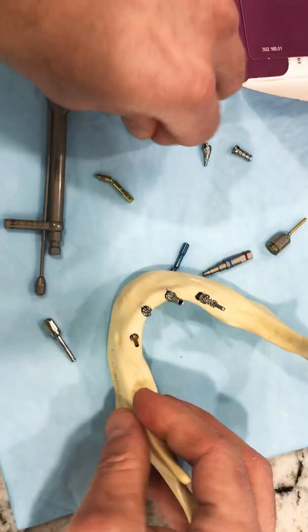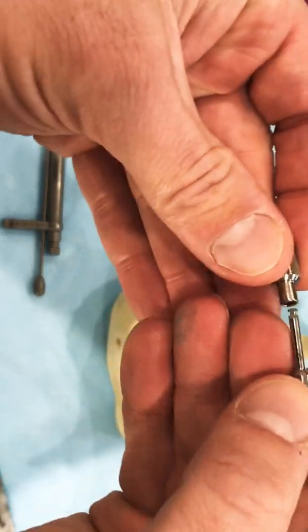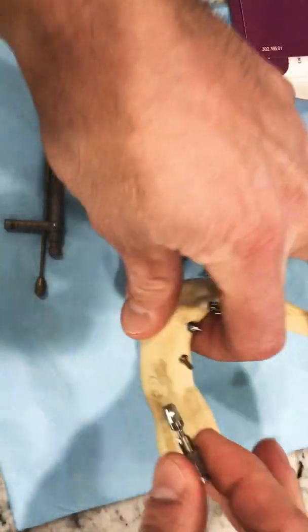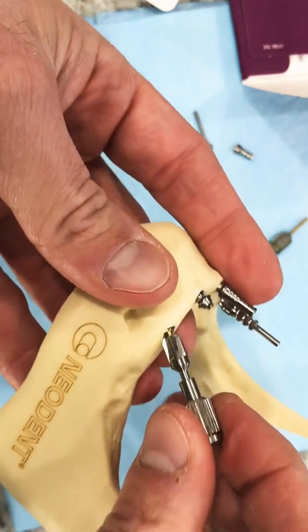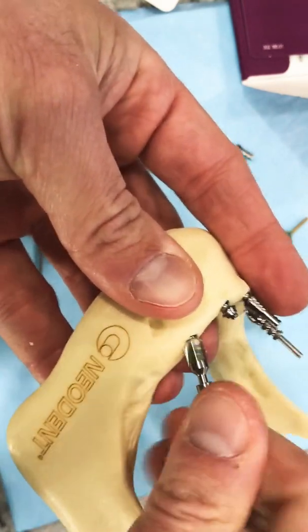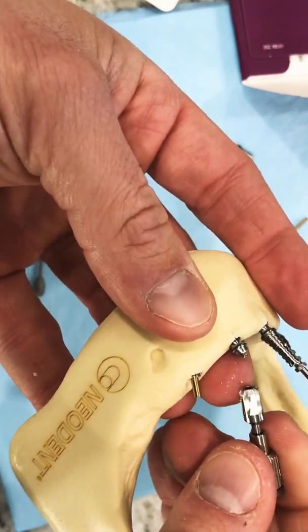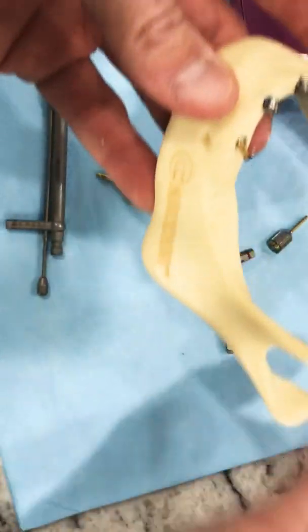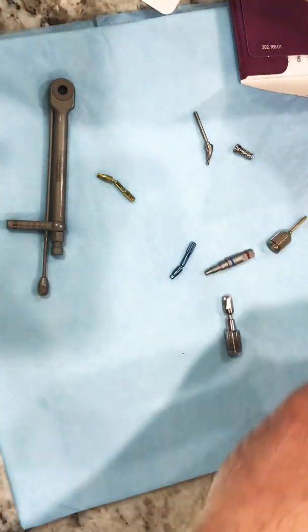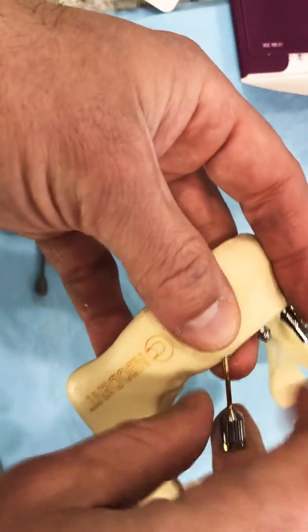Since I don't have a handpiece, I'm going to use my screwdriver — this is for the GM system, the star driver called a neo driver. I'll place this down in and turn it until it gets tight on the top of my implant. And then once that's down, instead of a handpiece, I'm using the latch type adapter today, which in a pinch you could even use in the mouth on the patient. This guy slips right over top, rotates back and forth, and takes the littlest bit of bone away — I can see some on the side of the profiler here on the sawbone material. It takes just the slightest bit of that bone away on the distal aspect.